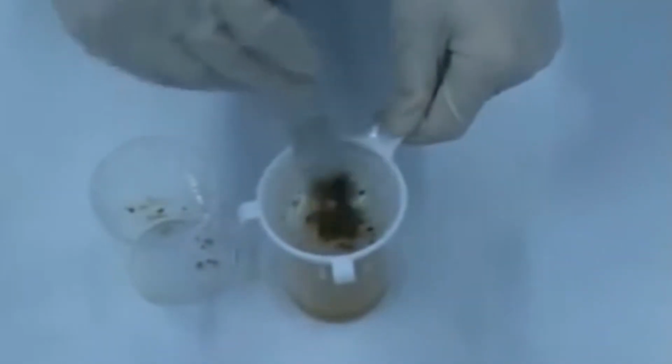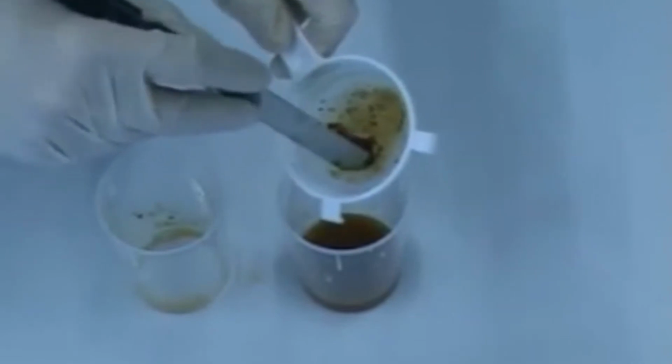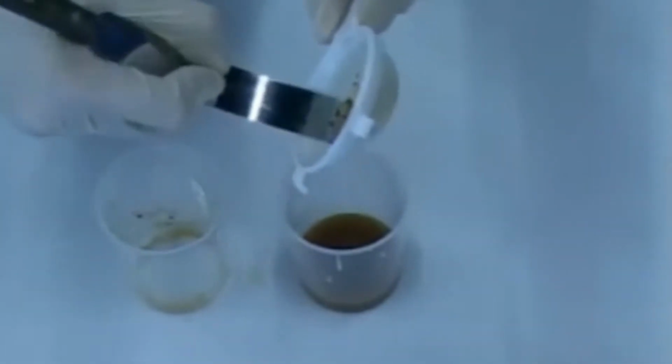Homogenize the sample using the spatula and pour the fecal suspension 3 times through a tea strainer to withhold the large debris. To obtain optimal results, it is crucial that the debris is firmly squeezed after the sample is sieved for the 3rd time. Once the debris is squeezed dry, it can be discarded.